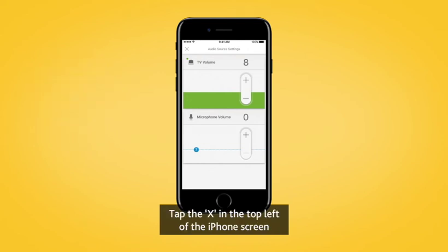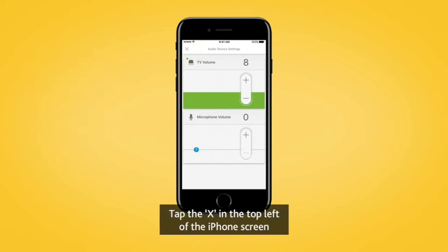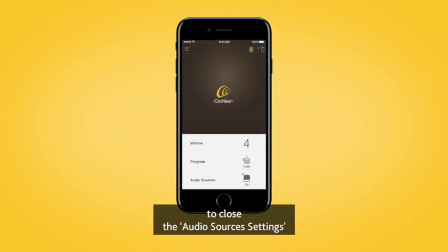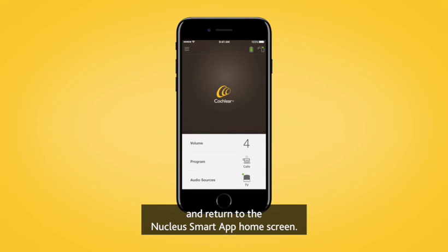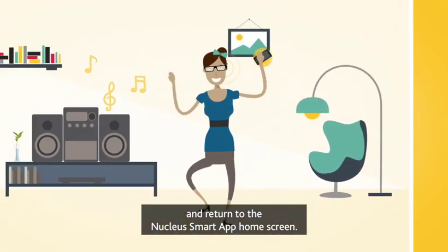Tap the X in the top left of the iPhone screen to close the audio sources settings and return to the Nucleus Smart App home screen.